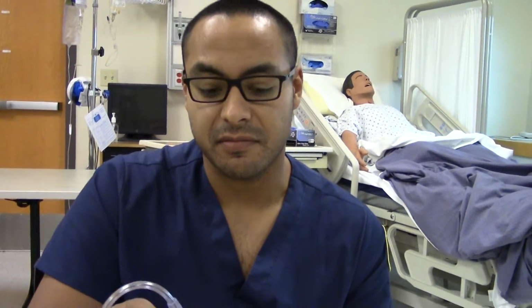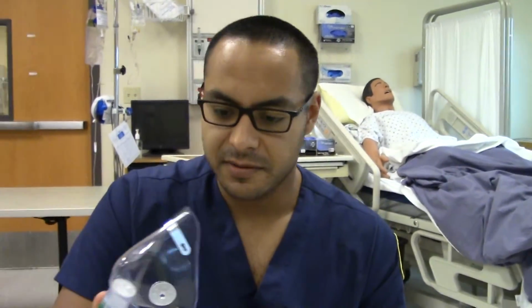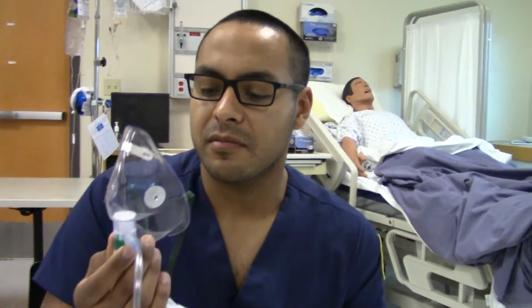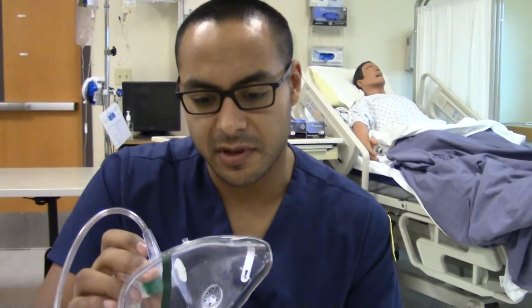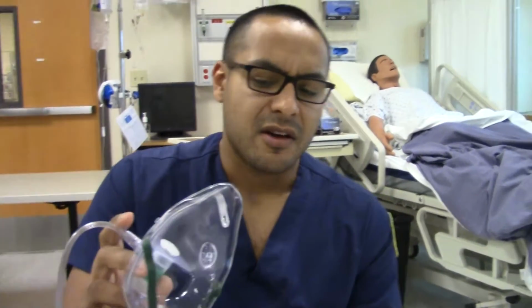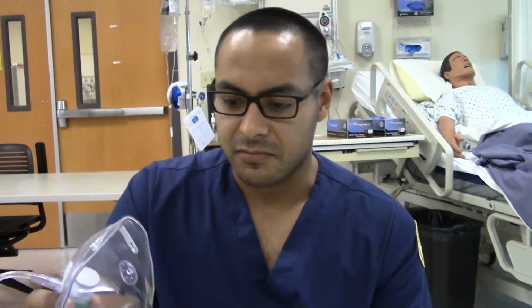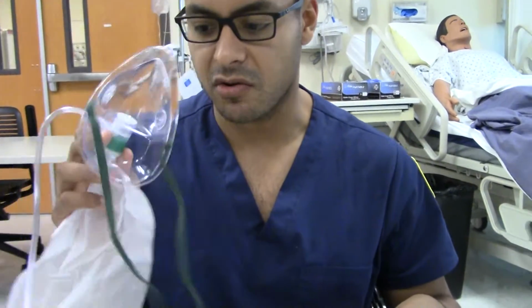It's best used again on children, adults and infants. Disposable, inexpensive, and it could be a suffocation hazard. Blocks vomitus in unconscious patients, captures a lot of radiant heat, so a lot of moisture could be built up in there. Patients have to take it off to eat. But this is only usually used in emergency situations, I guess. Well, emergency situations that need a higher FiO2 flow than the simple or the nasal cannula. They go to this.